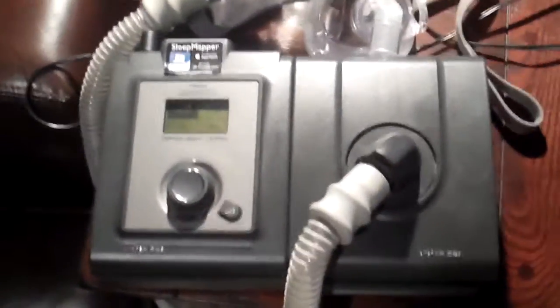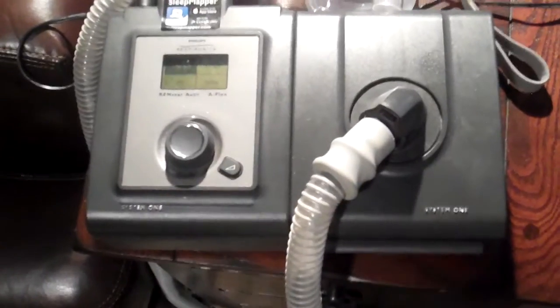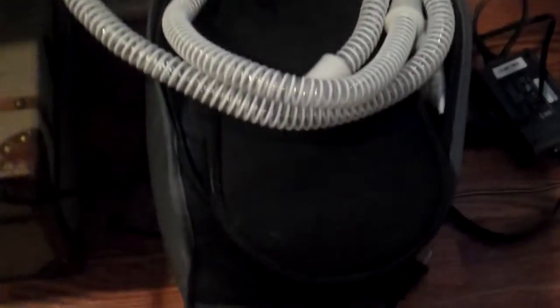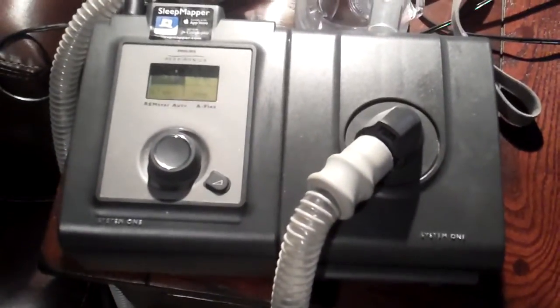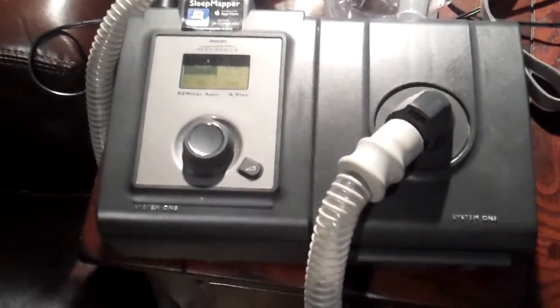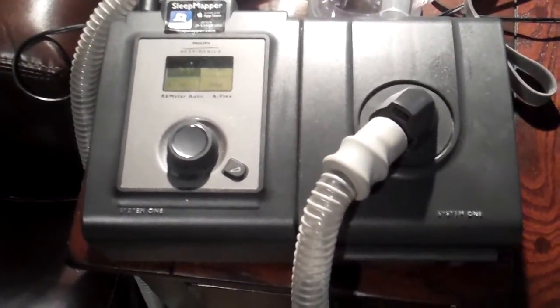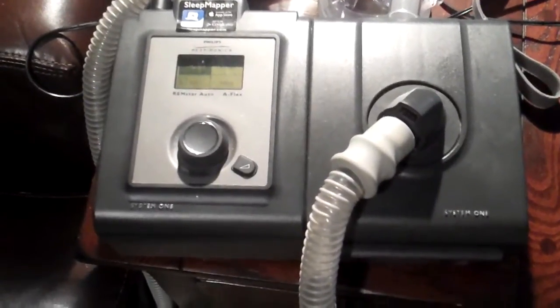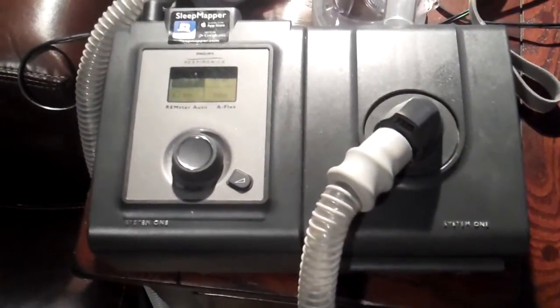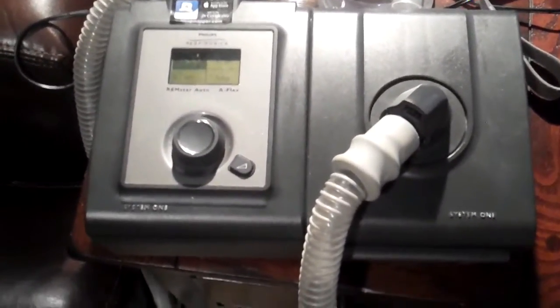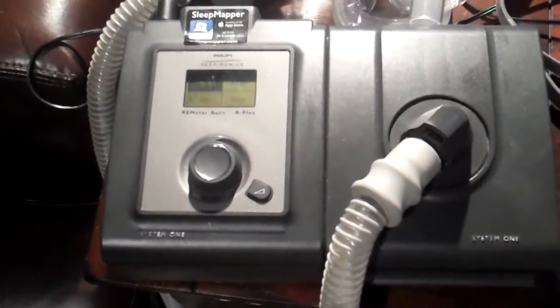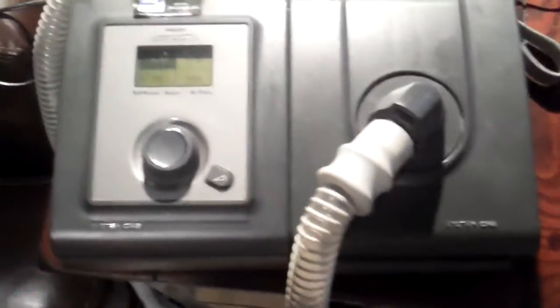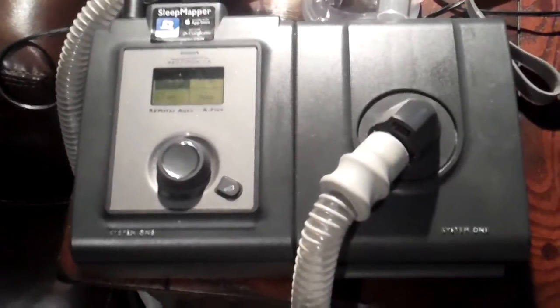So it's sporadic. So rather than pack this thing up into the little case - it comes with a little carrying case, I got it right here, it zips up, it's like an old VCR camera bag, you know the old school camcorders, the big ones, it goes in that bag, you zip it up and you can travel with it. So I bought a second one. And the people that are not compliant, there are a few people that lose a little bit of weight and they don't need the machine anymore. And then there's people that get three machines from their insurance company because they're all in - the insurance company will basically give you a new one every year because this is all medical shit, it expires. They take the expiration stuff seriously and the certifications. So they sell them on Craigslist. So I picked up a second machine for $125 on Craigslist which I keep at my job.